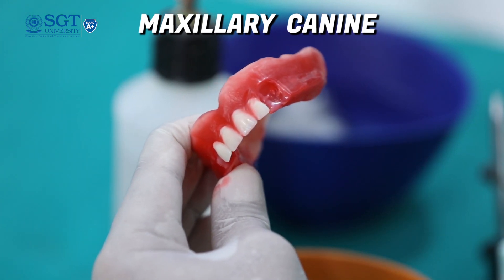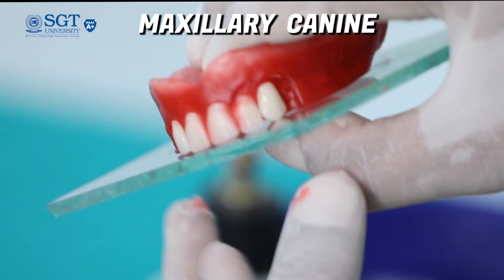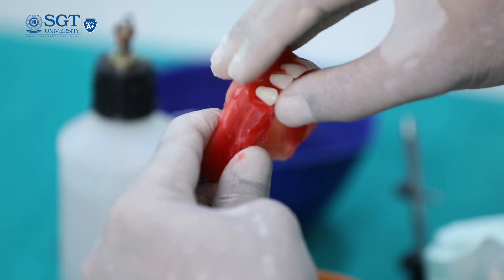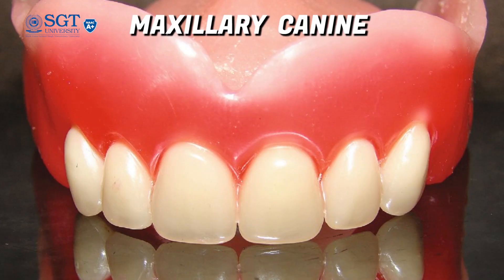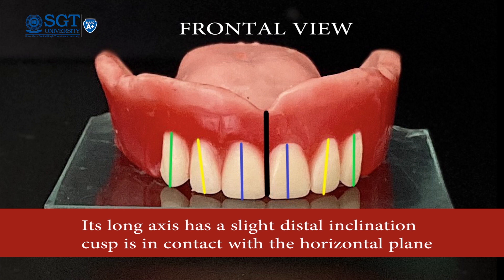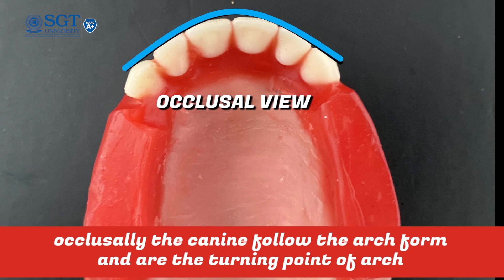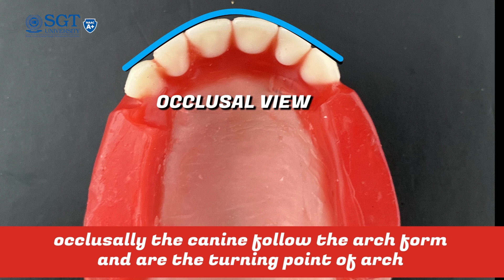After arranging lateral incisors, we start with the maxillary canines. In the frontal plane, the canine has a slight distal inclination from the perpendicular and the incisal tip touches the glass slab. Similarly, the left side canines are also arranged. The maxillary canine has two planes on the labial surface — a mesial plane and a distal plane. When viewed from the front, only the mesial plane is visible. The long axis of the canine has a slight distal inclination and the neck of the canine is the most prominent part, supporting the corner of the patient's mouth. In occlusal view, the tooth is rotated with the arch and represents the transition from anterior to posterior — the turning point of the upper arch.